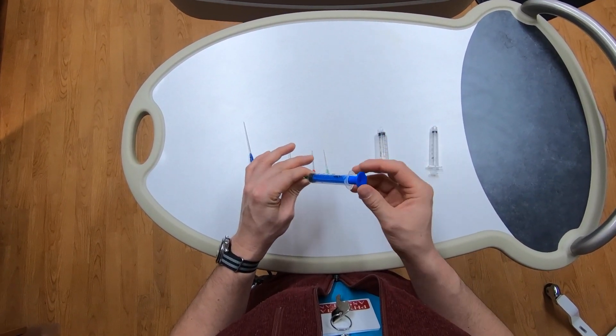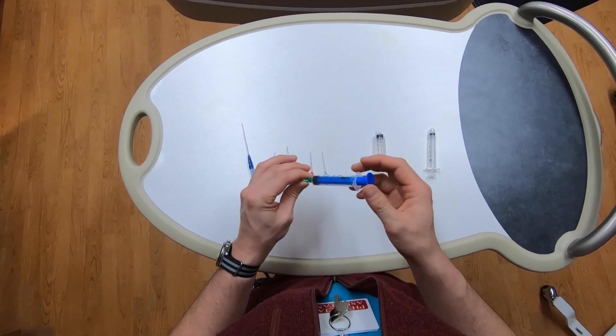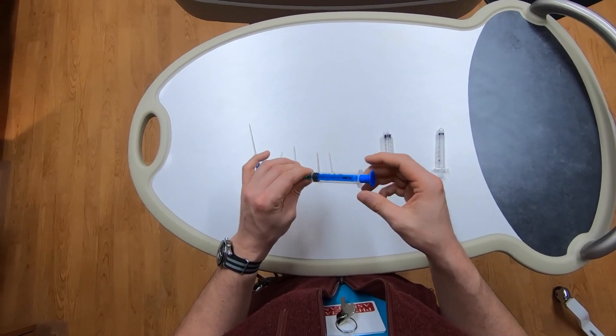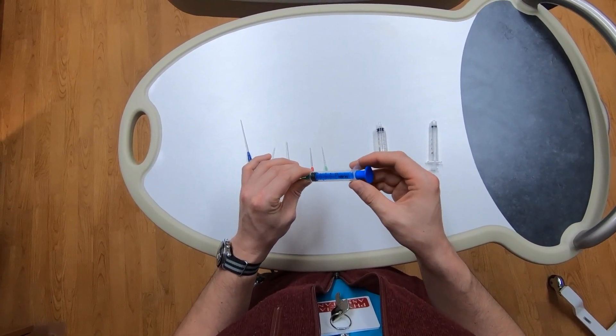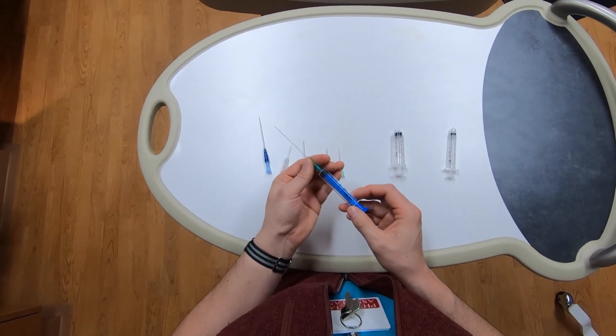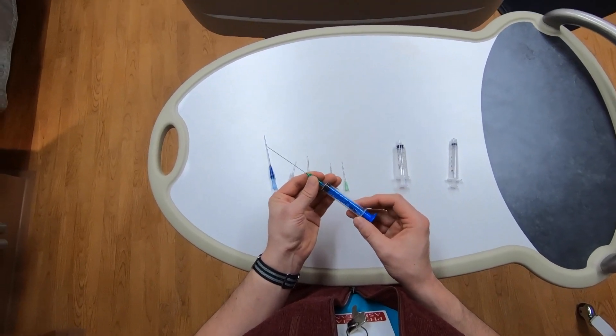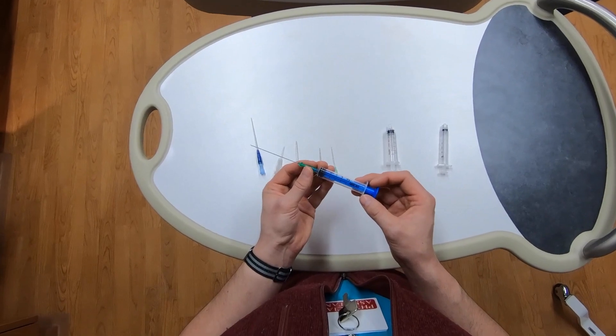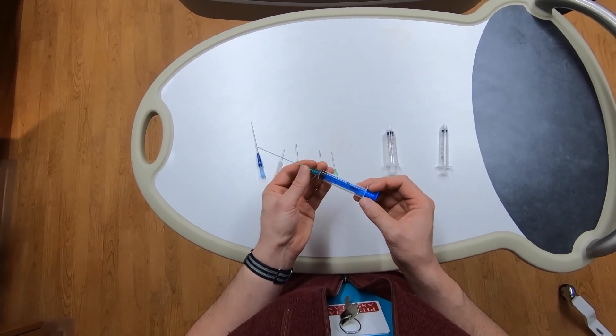Some people may find this easier than having to remove the syringe while maintaining stability of the needle, although that's probably a skill you should learn. However, I think many providers are not very fond of it. The entire syringe is a little unwieldy, and passing a wire down this makes it quite difficult to have a good feel for what it's doing, whether there's resistance or it's passing freely or even how much of it is in.